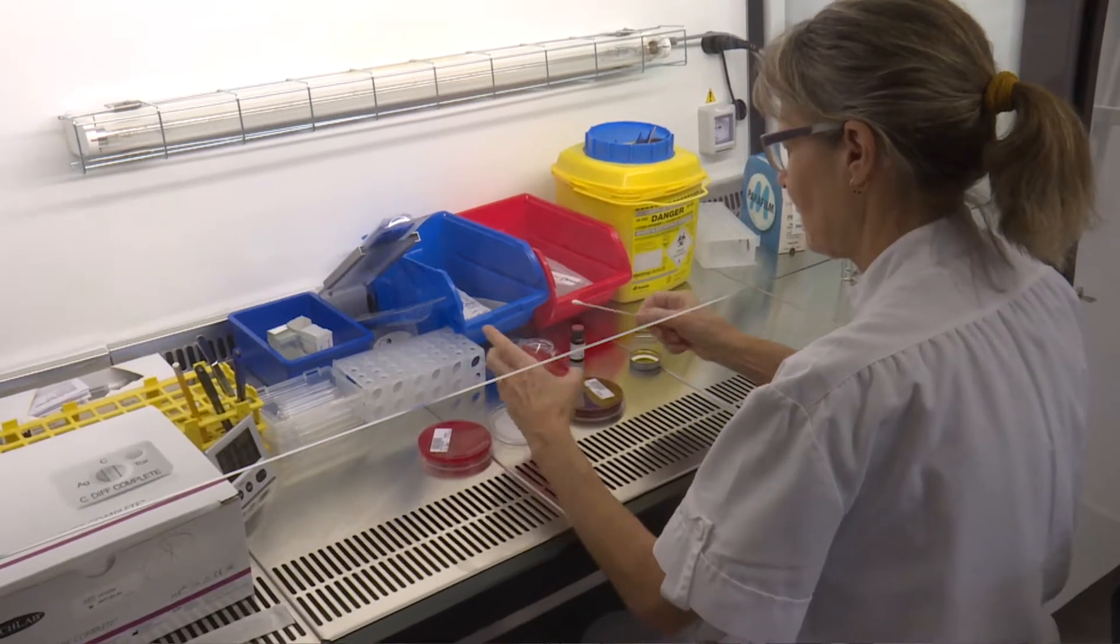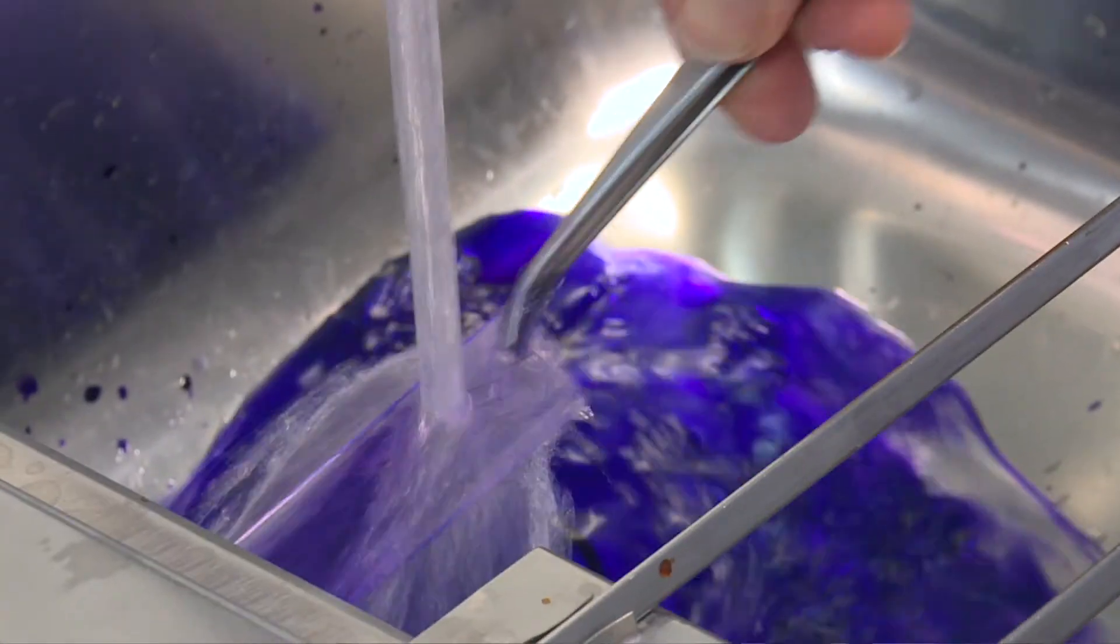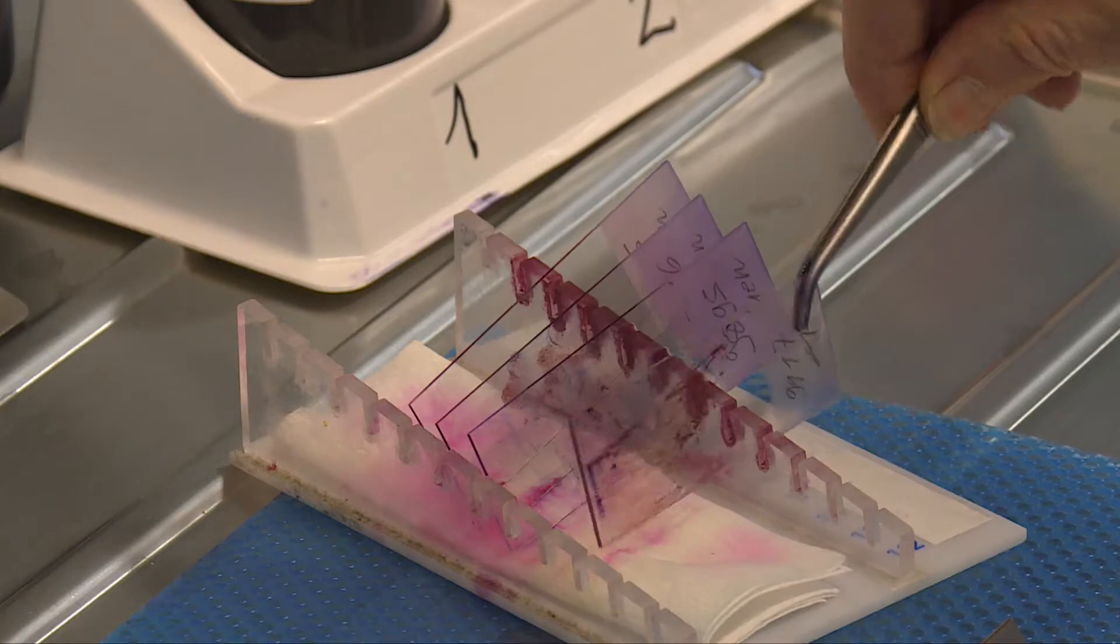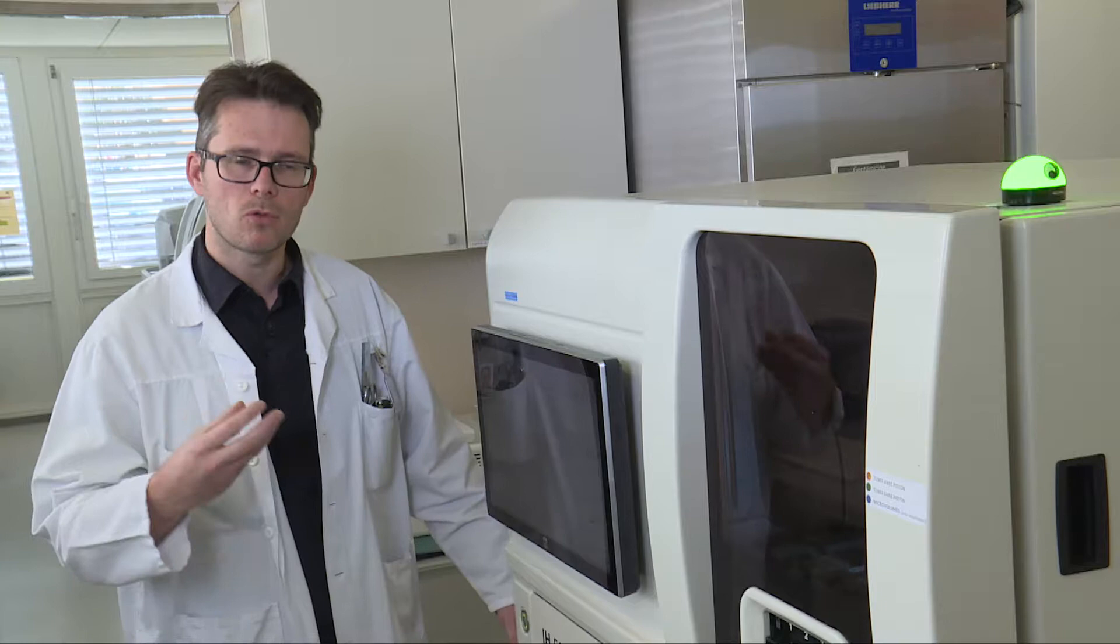Our laboratory offers a wide range of services including chemistry, immunochemistry, hematology, hemostasis, microbiology and, naturally, immunohematology. The laboratory also oversees the hospital's blood bank.